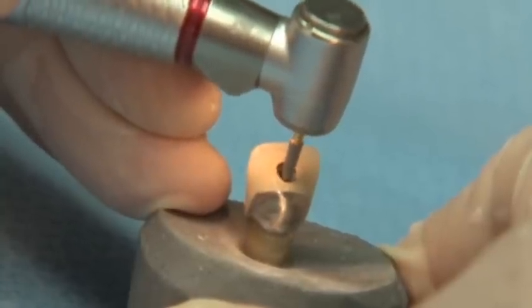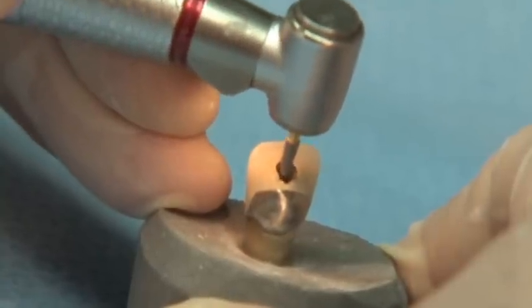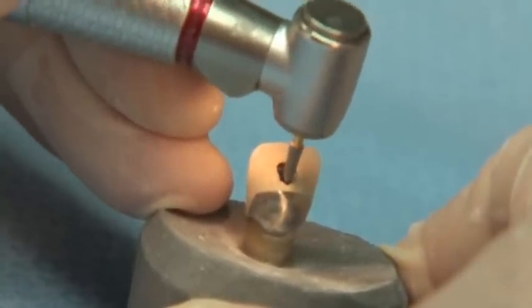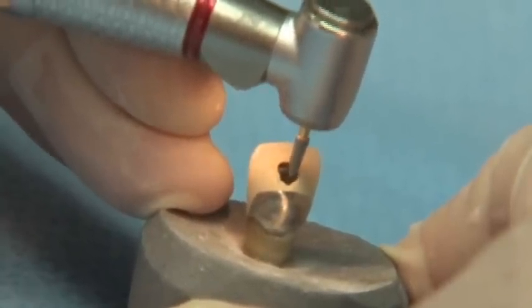The Great White Gold Series is the number one selling endodontic access burr worldwide and continues to be the only operative carbide burr to receive the prestigious 5-star award from Reality Publishing Company.